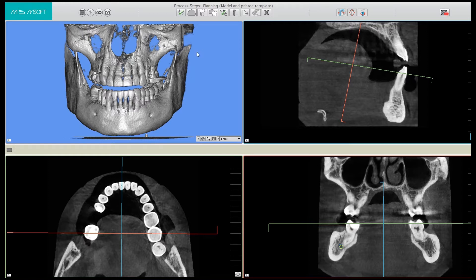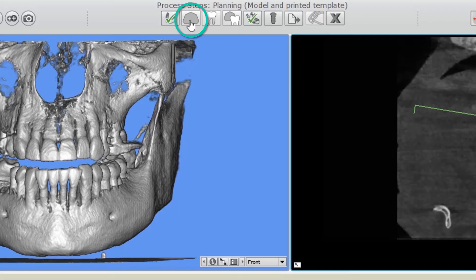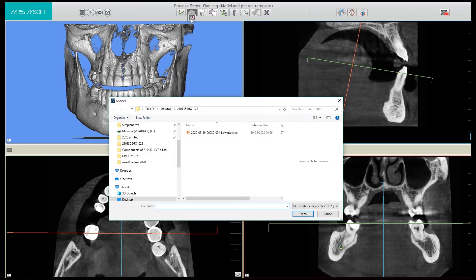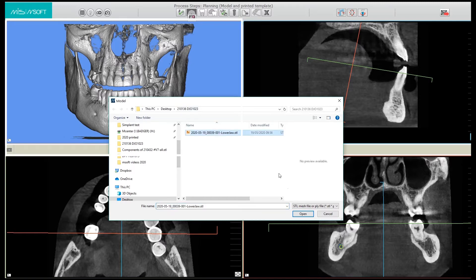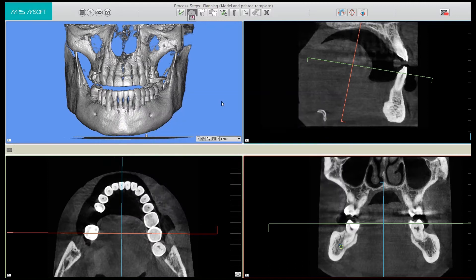In the matching phase, we're going to match the STL file to the DICOM. We first click on step 2 — the second button from the left on the button bar at the top of the screen. Click once more and navigate to the folder where your file is. Select the file you want to upload. It will take a few seconds for your STL file to upload.